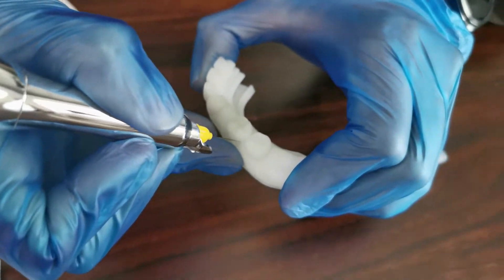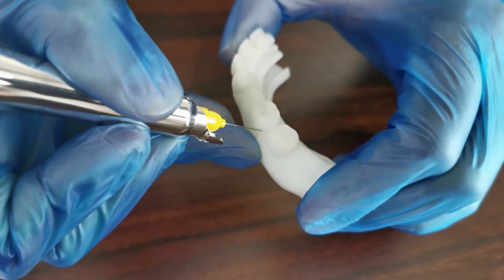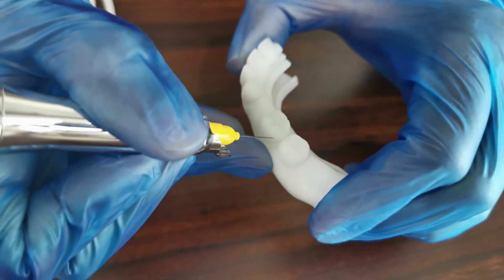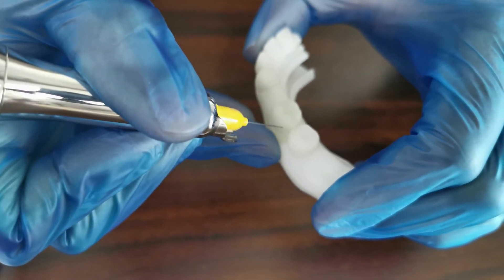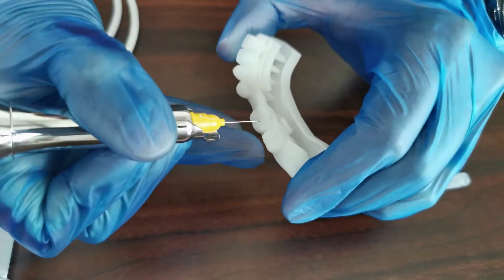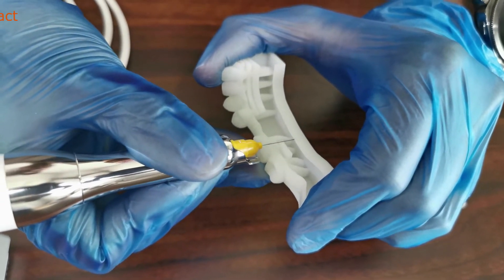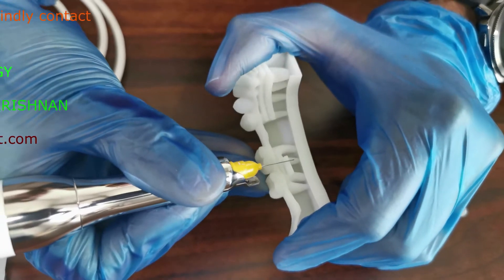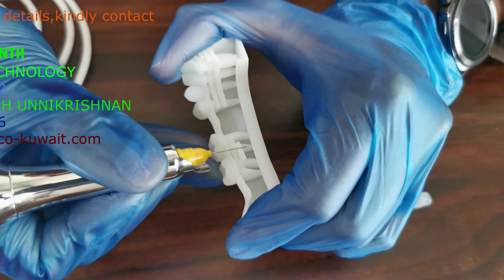This shows in a virtual way how the needle rotates and penetrates the cortical bone. Usually on the third rotation the cortical plate is penetrated, and with one more further rotation you bring the needle to at least three-quarters inside the cancellous bone, with only one-quarter being visible. As you can see from this jaw, the needle will be placed very close to the apex, and now the second stage is done.